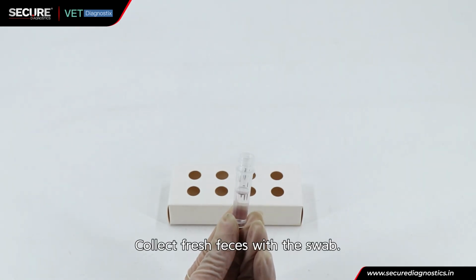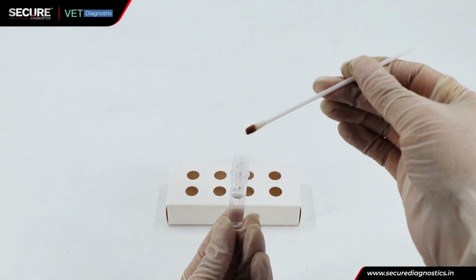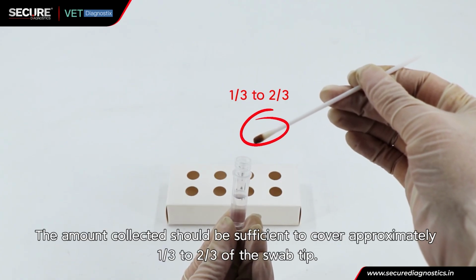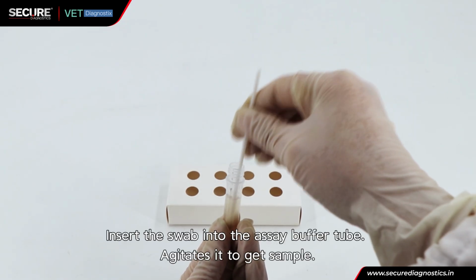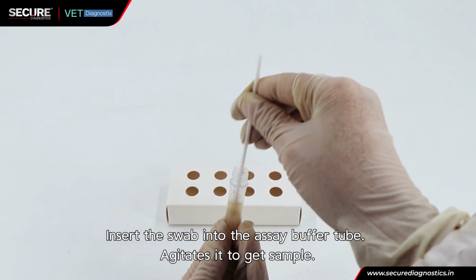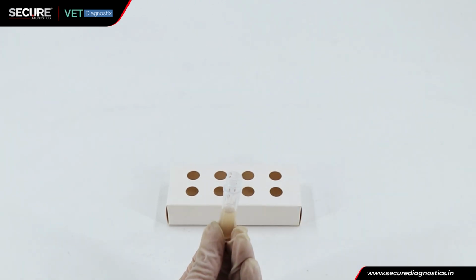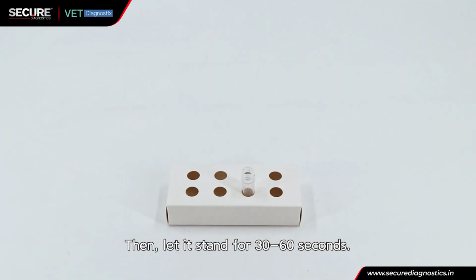Collect fresh feces with the swab. The amount collected should be sufficient to cover approximately 1/3 to 2/3 of the swab tip. Insert the swab into the assay buffer tube. Agitate it to get sample. Then, let it stand for 30 to 60 seconds.